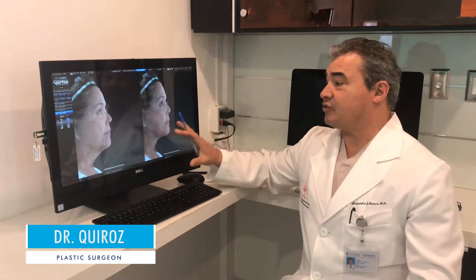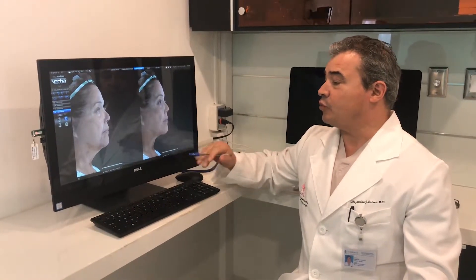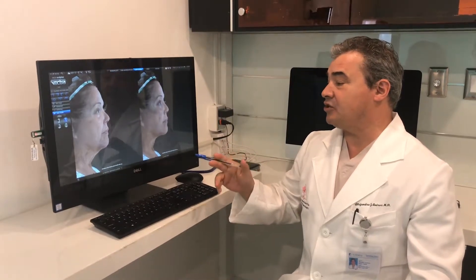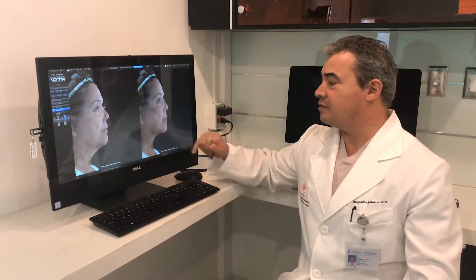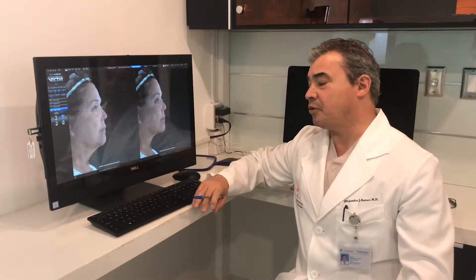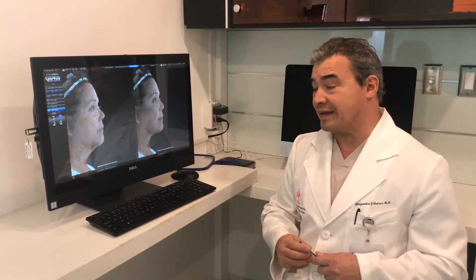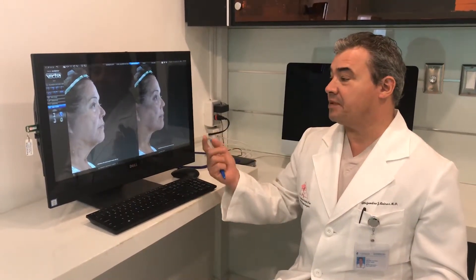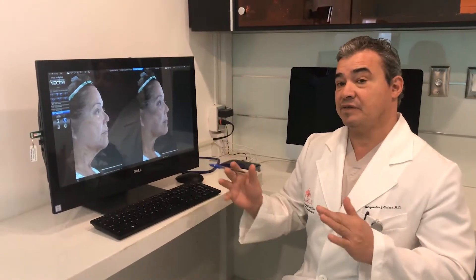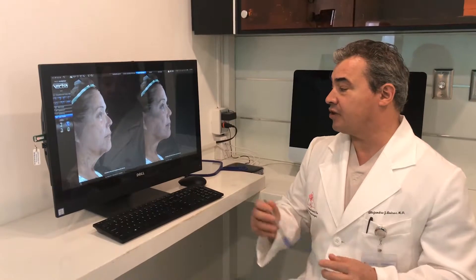This is the Vectra system that we use in consultations to help patients understand more about the surgery. One of the most difficult parts for patients is to foresee how they're going to look, what is reasonable, and what they can expect. The Vectra system helps us modify images of the real person to show them how we understand their case.